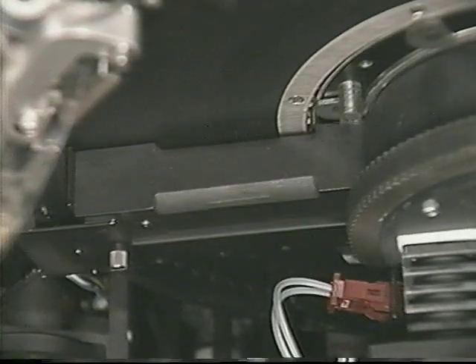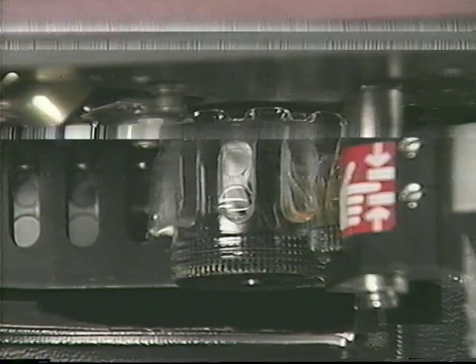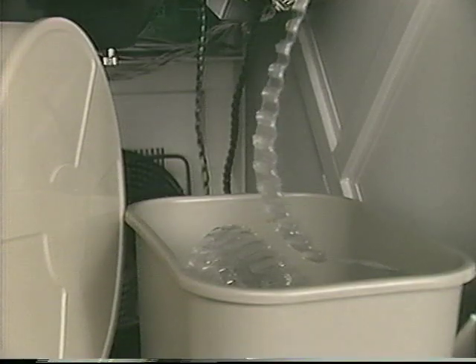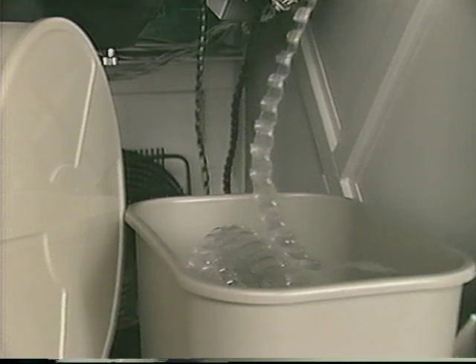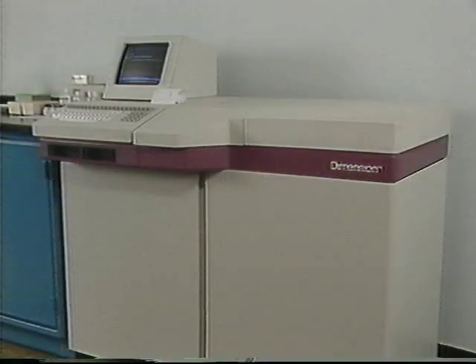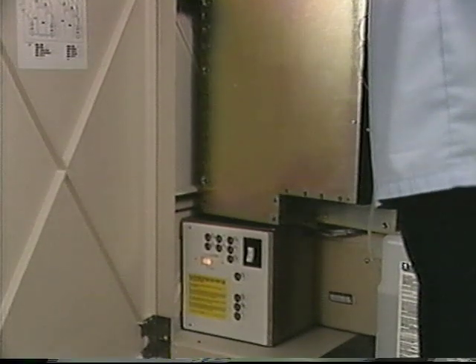The optical quality of each newly formed cuvette is checked and ensured by a photometric reading before the cuvette can be used in processing. When the reaction is complete and readings have been taken, the cuvettes continue around the cuvette wheel until they reach the top seal. Here, the top edge of the cuvette is sealed to contain biohazard waste within the cuvette. The used cuvettes are then fed into a waste container beside the film cartridge housing.